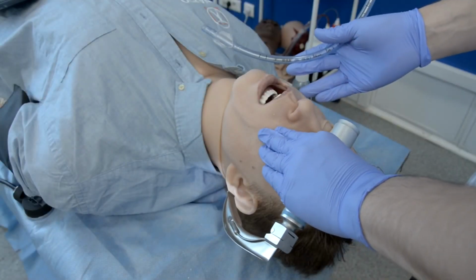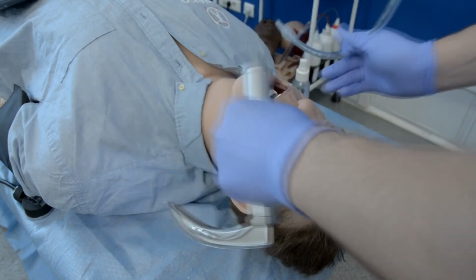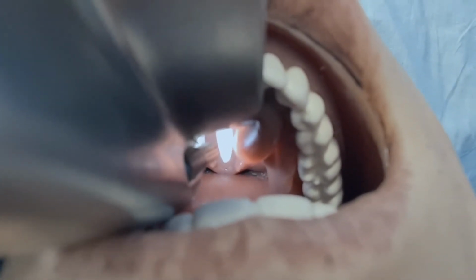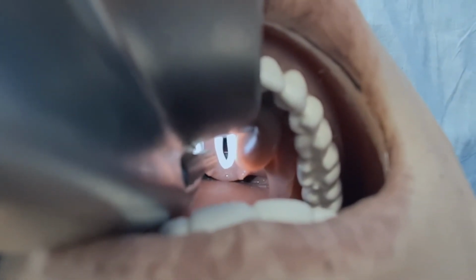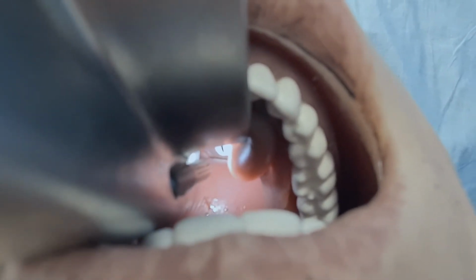Let's have a look at Leonardo's intubation and try all the difficult airway complications that we have here. Here we have laryngeal obstruction and laryngospasm. Let's have a look at them both. And if we introduce also the tongue edema, yep, we're going to have a very difficult airway for sure.